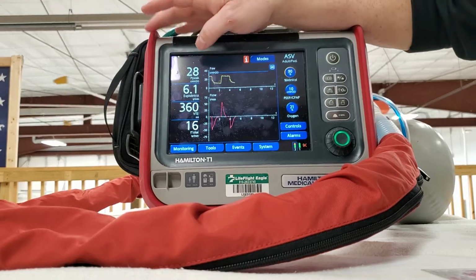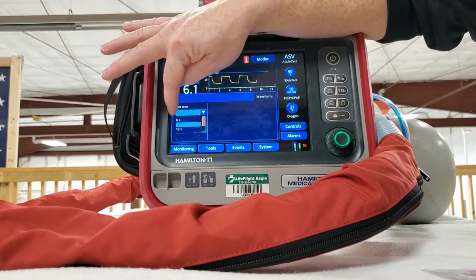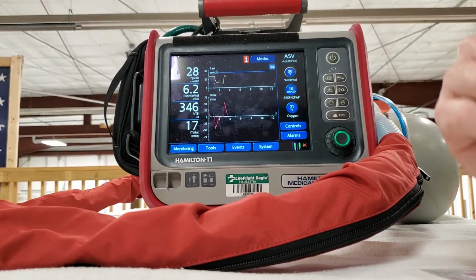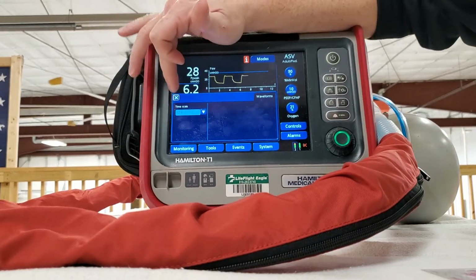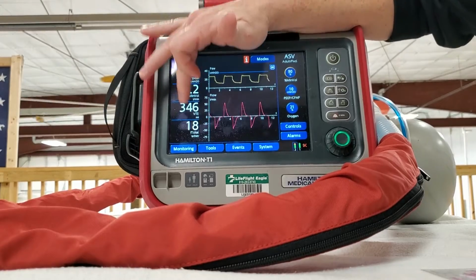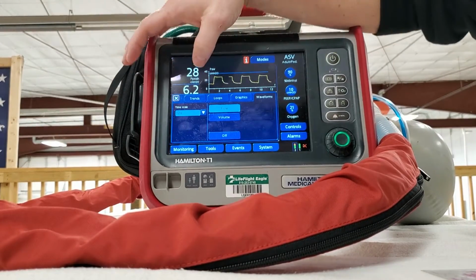Now you see, I didn't confirm it. It might not let me change it either. I'm not going to change it because then I'll forget to change it back and be in trouble. So you can't change this; this is what you always get. But here, you can change between what you want.